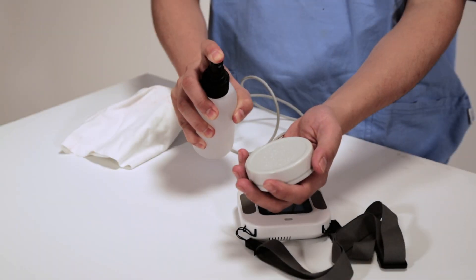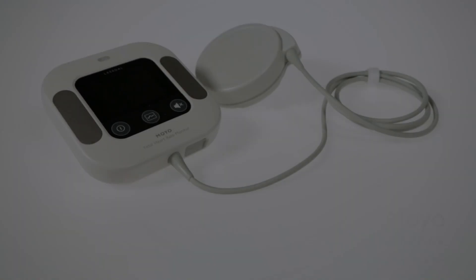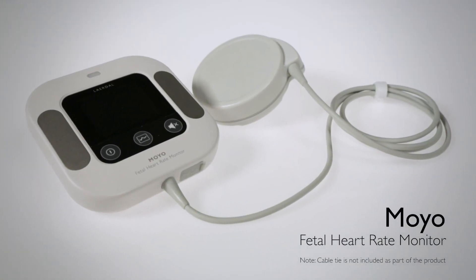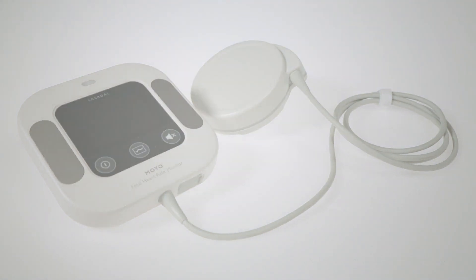The complete Moyo unit can easily be cleaned with ethanol and a damp cloth. During labor, Moyo helps health workers make timely decisions by providing quick and accurate feedback on fetal heart rate.